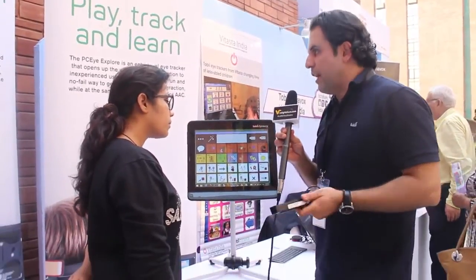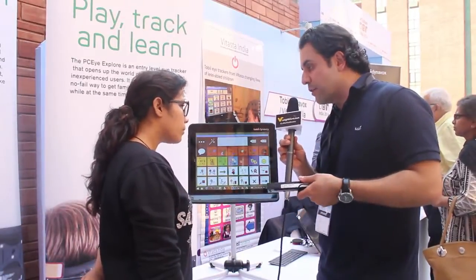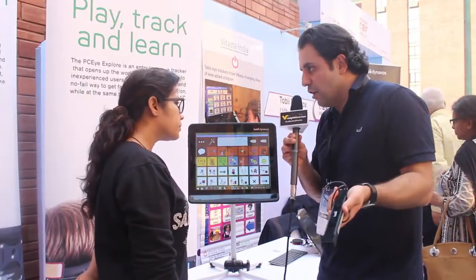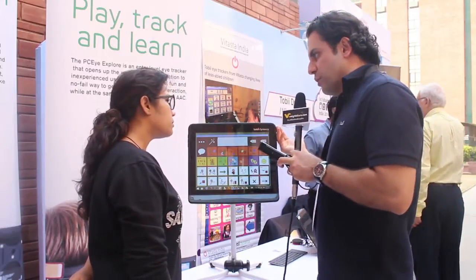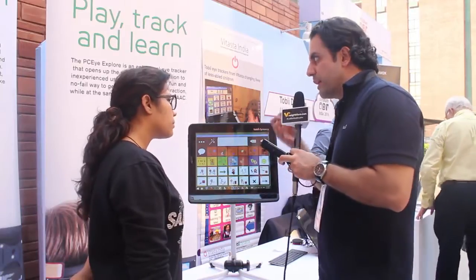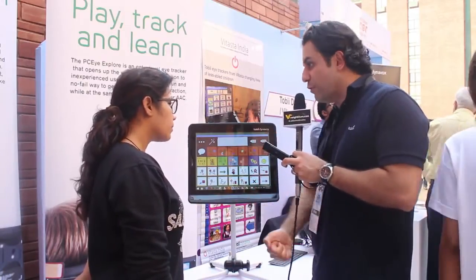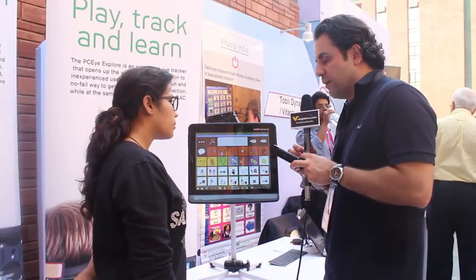On the other spectrum, we have adults who, out of injury or a disability that they are born with or acquired, suddenly cannot use their hands or are totally paralyzed. For example, like Dr. Stephen Hawking, who has ALS. Those kinds of users already know how to use a computer. They just have to learn how to use it with their eyes. So those individuals, of course, are not using symbols. They are rather using on-screen keyboards where they can look with their eyes and type different things and post on Facebook, write emails, be on Skype, make SMS and phone calls, basically be independent the way they were before the disability or before the injury that they acquired.